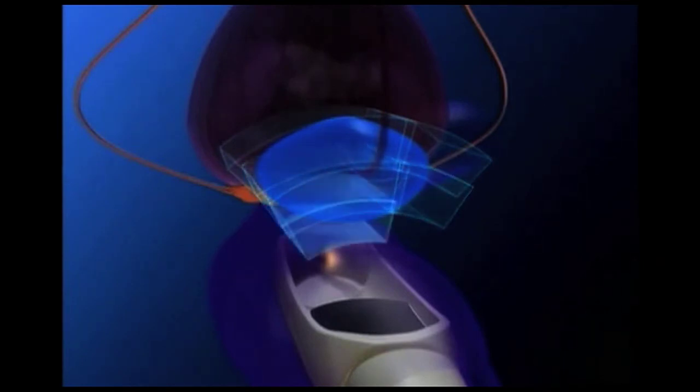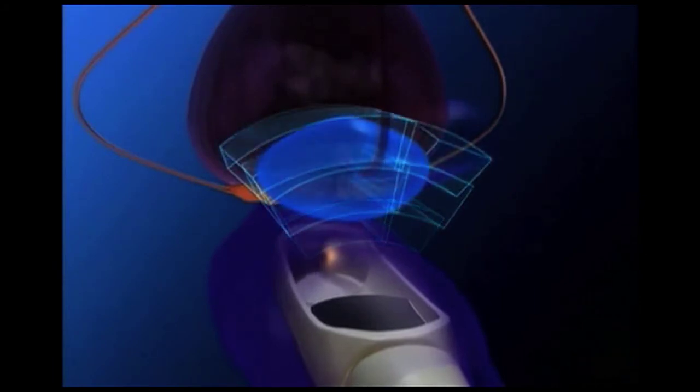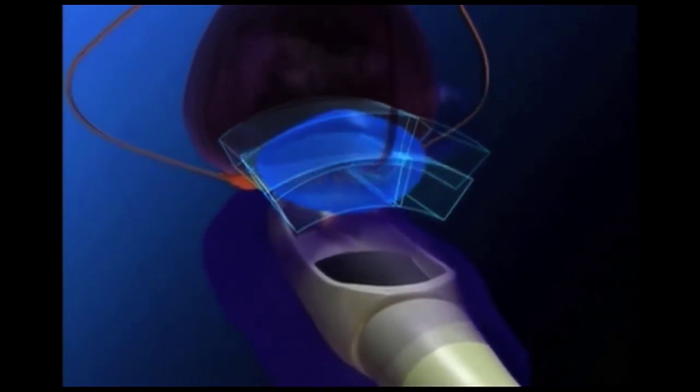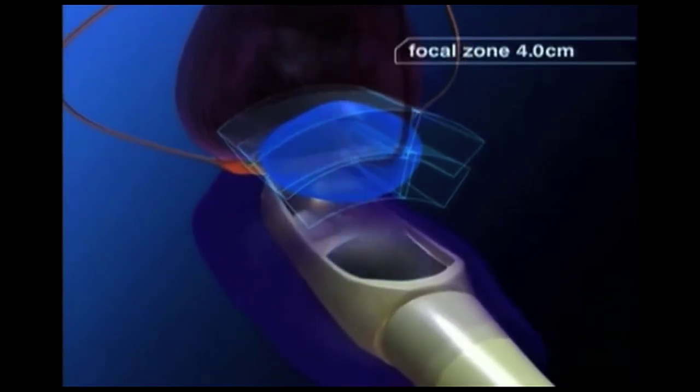Similar to what happens when sunlight is focused through a magnifying lens, precise focusing of ultrasound energy during HIFU treatment elevates the temperature of the tissue in the focal zone very rapidly.